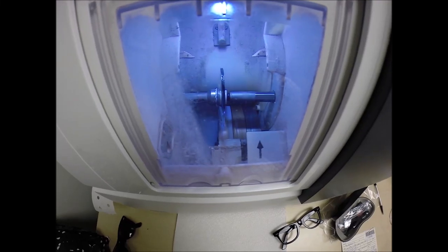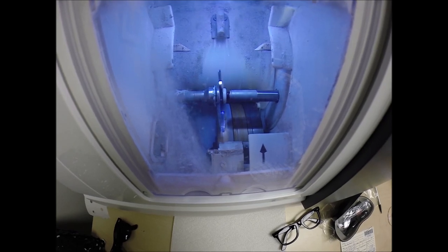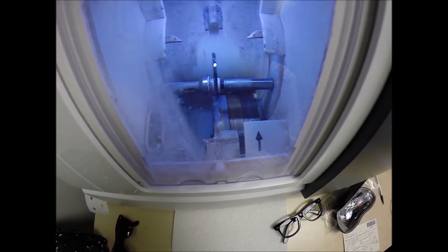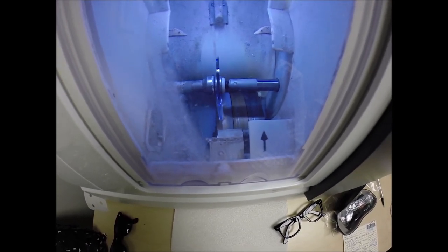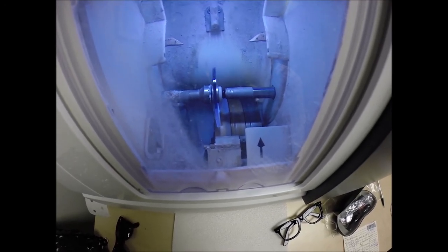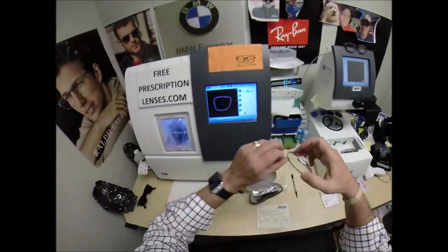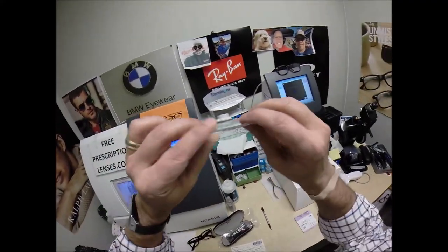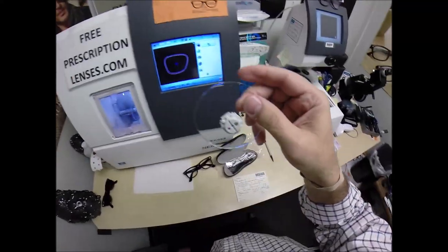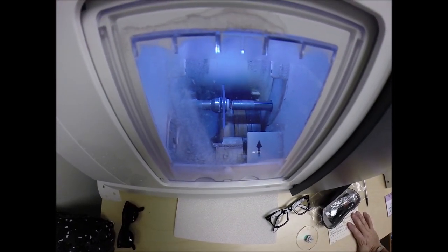The water you see running in the background is there to catch the optical sawdust as it comes off the cutting wheel. Polycarbonate lenses cut dry, meaning no water sprays on during the cutting cycle — whereas plastic, high index plastic, and Trivex do cut wet. Water will spray onto your lens only for the last 20 seconds to wash away the optical debris. Your lenses are made out of polycarbonate: they are 40% thinner and lighter than regular plastic, and virtually unbreakable.